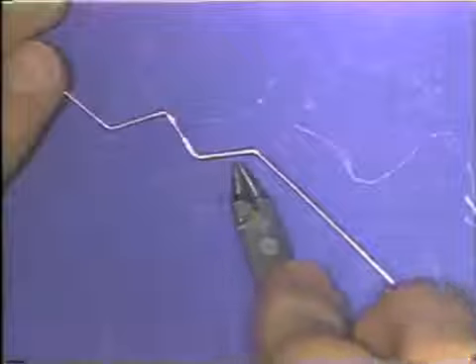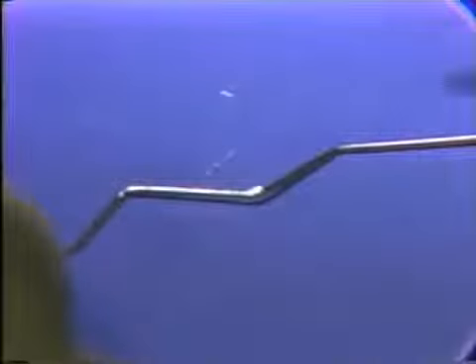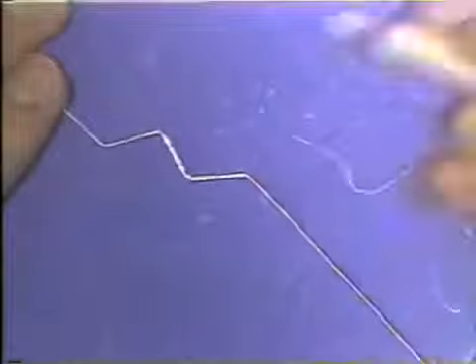And now this next leg of the wire is also flat. This last portion of the wire still is off the table, and so a small mark is made at the spot where the wire leaves the table, and again a small downward compensating bend is made in the wire.